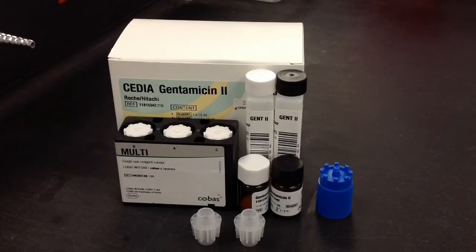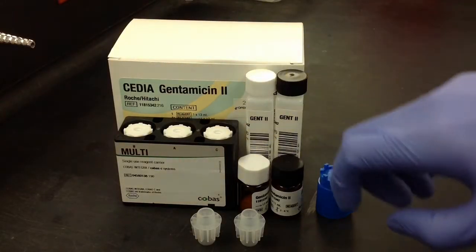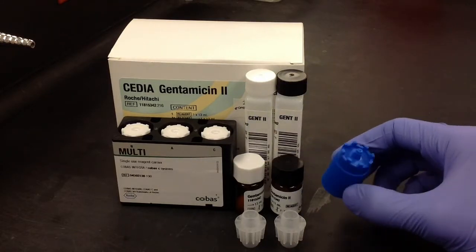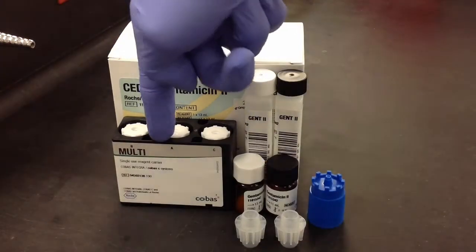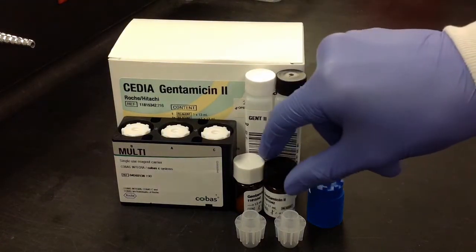In this video, I'm going to be showing you how to set up and load an open channel reagent pack. I'm going to be setting up a gentamicin for our Cobas. All you're going to need to get started is everything you see there in front of you, which is going to be the actual reagent pack reagents, the multi-pack, cap remover, the cassette itself, and just some connectors.